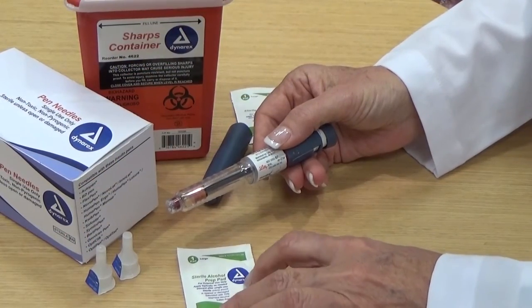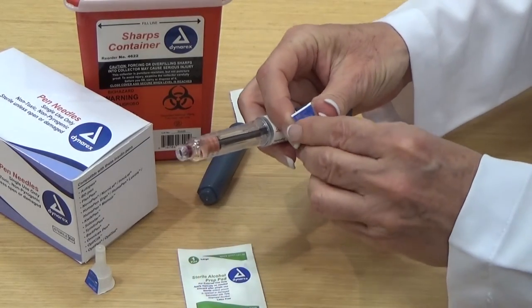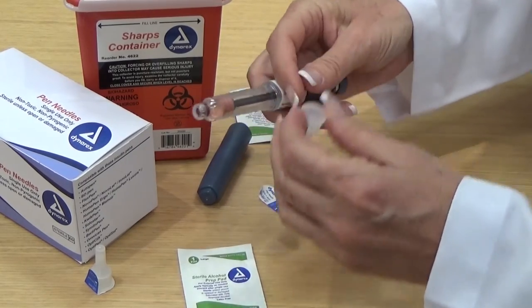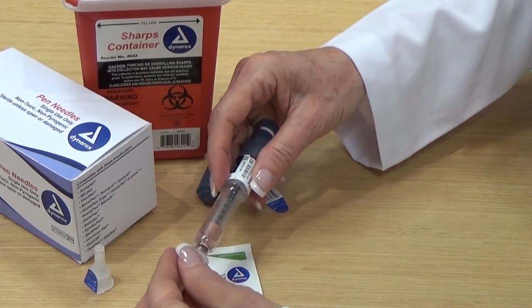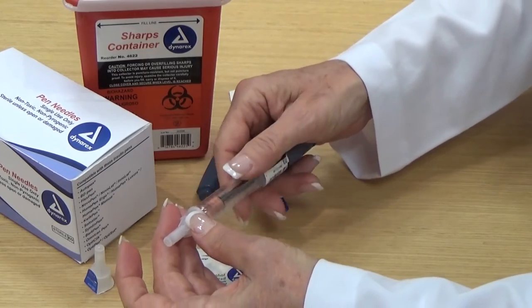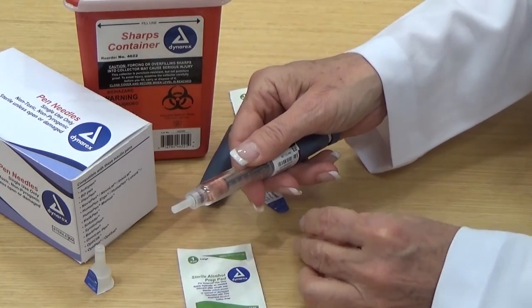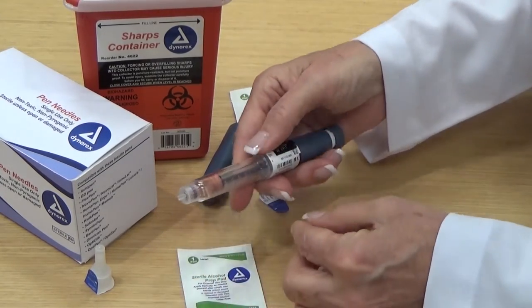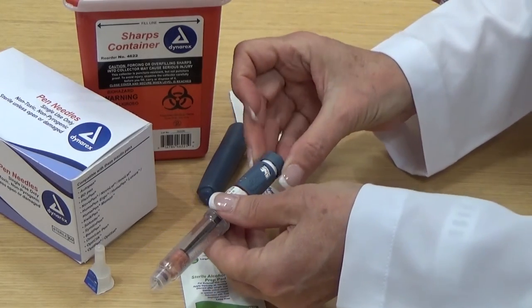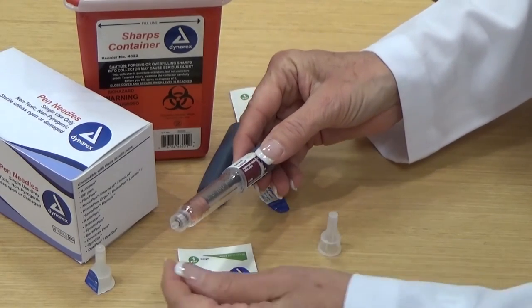So you're going to prep your skin with a Dynarex alcohol prep, and then you're going to open up your pin needle and insert it into the syringe and twist, remove the caps, you'll test, and then you'll set the insulin to your desired dose.